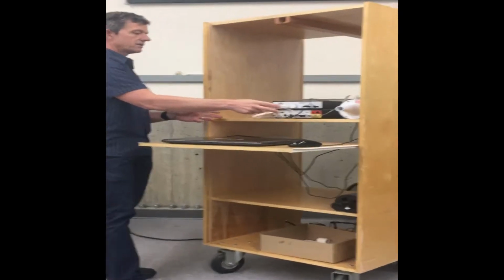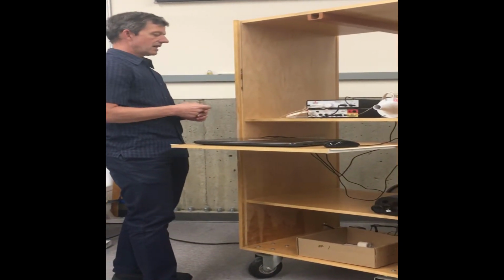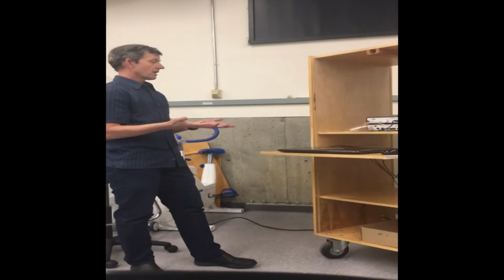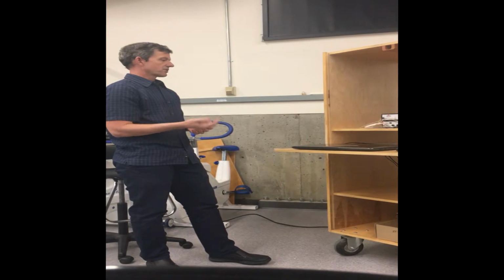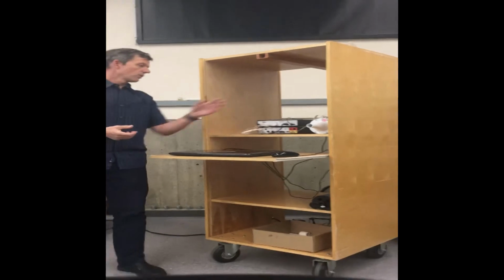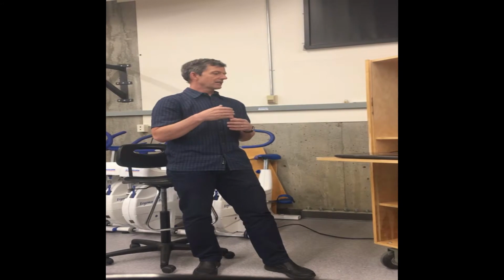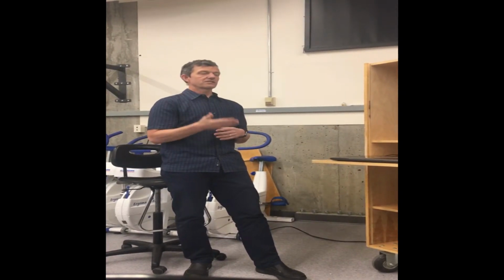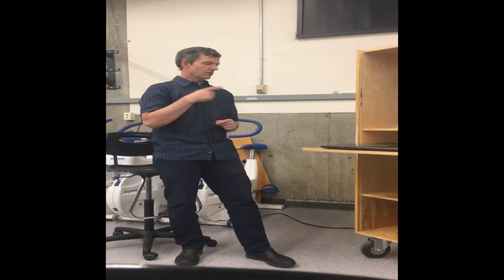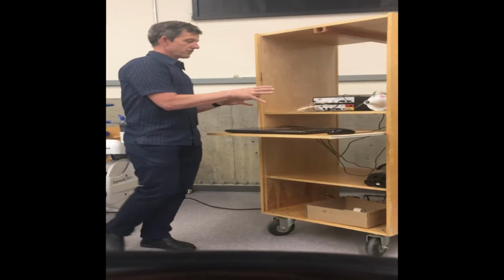So this is our flow head, similar to what we've done before. There's two flow tubes on the top that are going to hook into our TA. We've connected the gas analyzer to the TA. So everything is hooked up, ready to go, and again, we want to test it to make sure that everything is functioning correctly. We also have a mixing chamber at the other end of the flow head, and the reason we have a mixing chamber is, as the air comes in, we want it to mix so that it's not stratified. We have a homogeneous air sample that's coming through. Typically when you see a system like that, you're going to have a mixing chamber where the air can come through, circulate around, and then we can monitor what the flow is. So that's how this system is going to work.